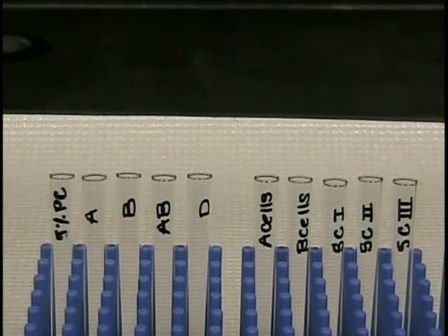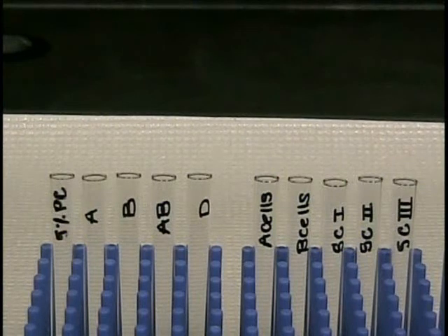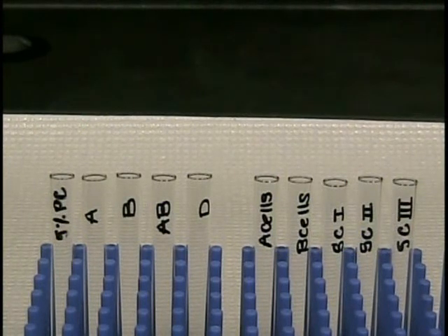And then reverse cells: A cells, B cells, and screen cells 1, 2, and 3.